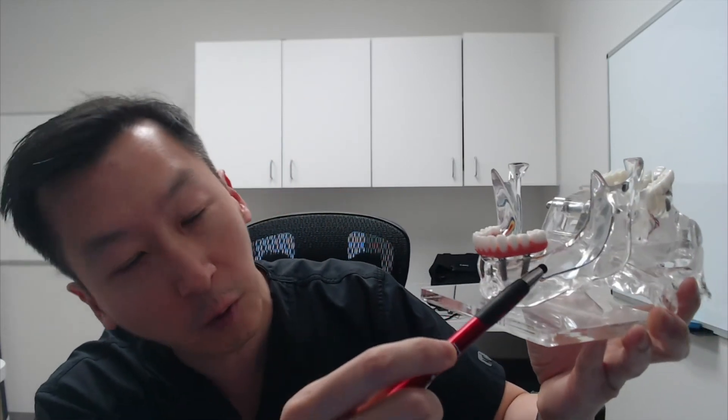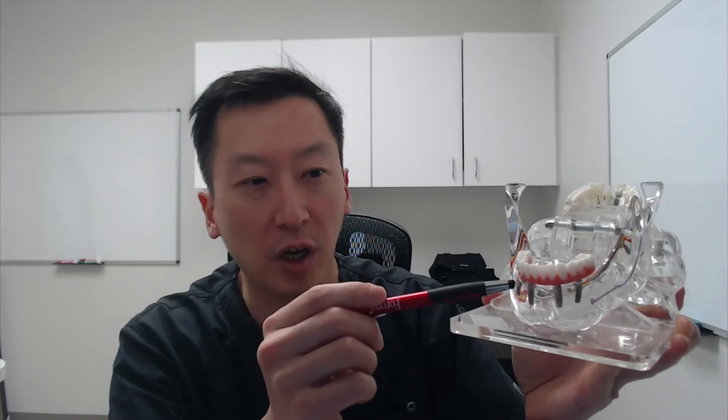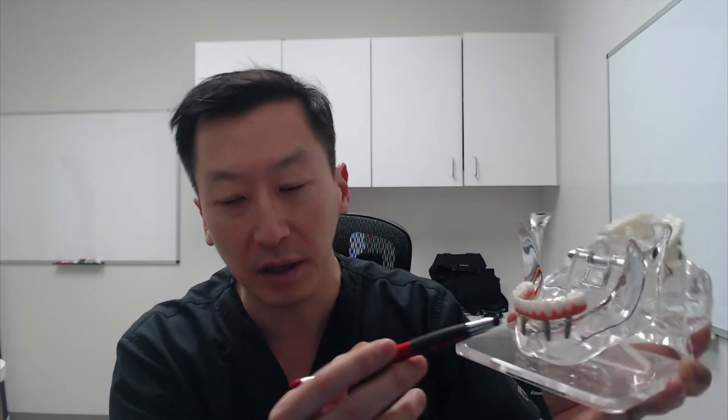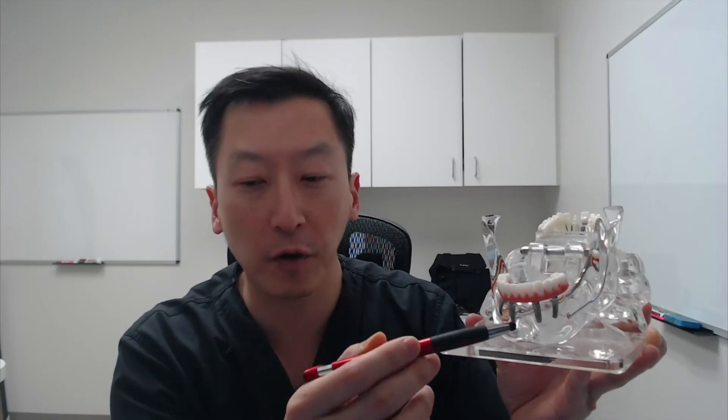We have four dental implants — one, two, three, four. These are the dental implants, the titanium screws that we place into your jawbone, which become osseointegrated after about three to four months. Once that heals, these implants are firmly attached to your bone — virtually impossible to remove unless drilled out because they have such great anchorage.